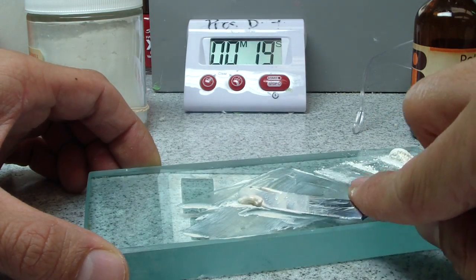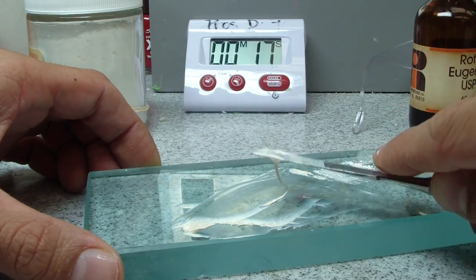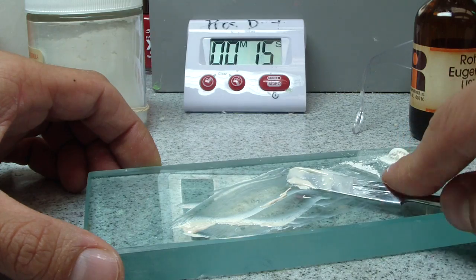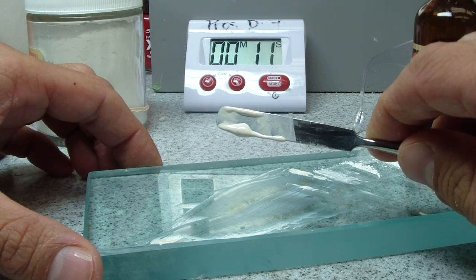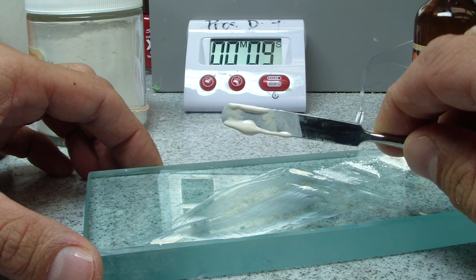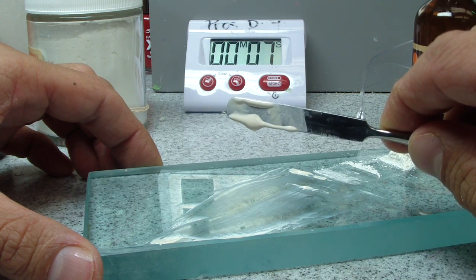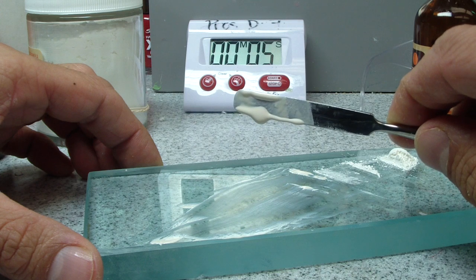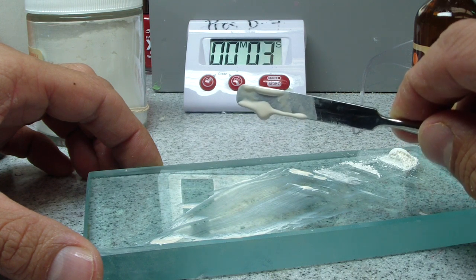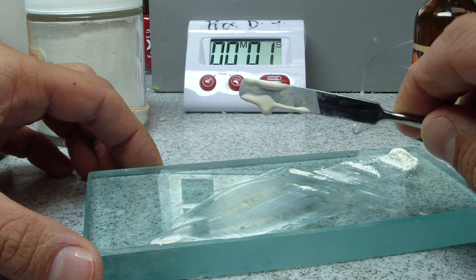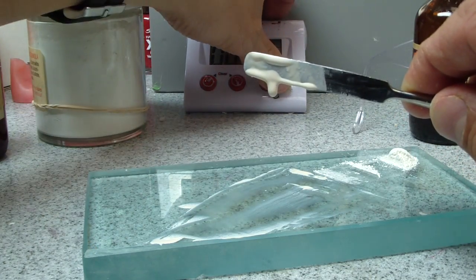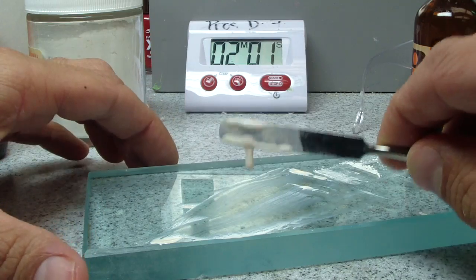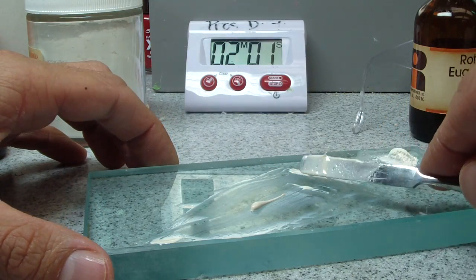Okay, so there's kind of that inch. Let's do the test. We have the timer. Oh, I looked at the watch. Okay, there's 13. Just did some rowing, my arm's a little shaky. And I'll give it two extra seconds. So that looks like that's about the ready set.